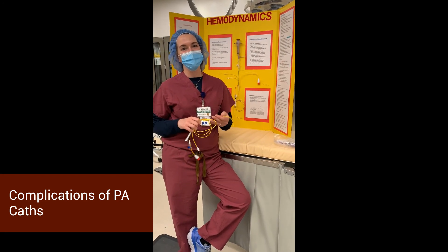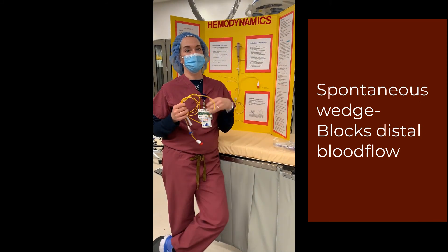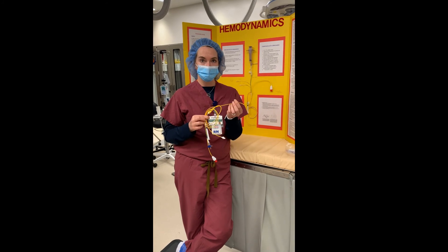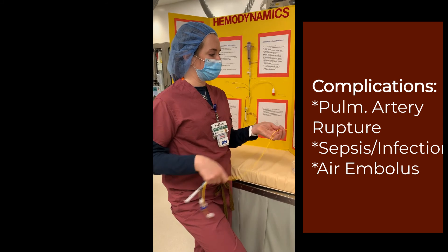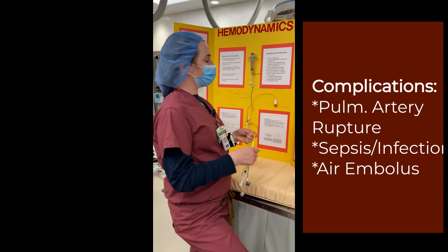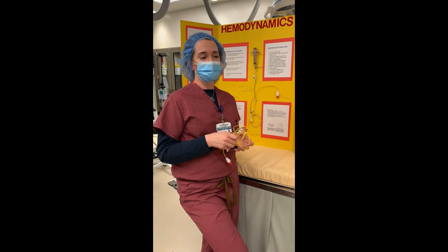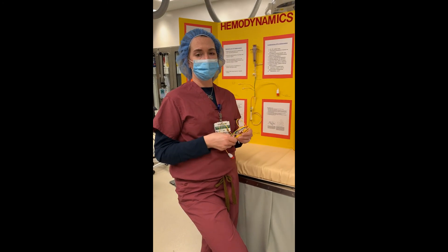Let's talk about some complications of the PA catheter. One of the big ones is spontaneous wedging — cutting off distal blood flow past the balloon — which would not be good for a prolonged period of time. Pulmonary artery rupture is also possible — again, really bad but it can happen. Other complications include infection, sepsis, and air embolus — if there's any air in your pressure lines or you're not flushing properly, you can get an air embolus.